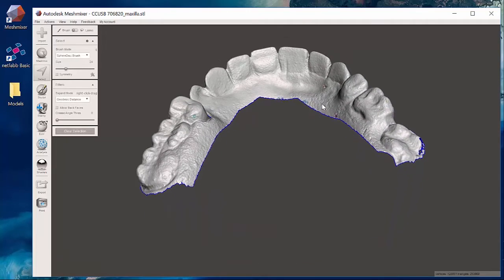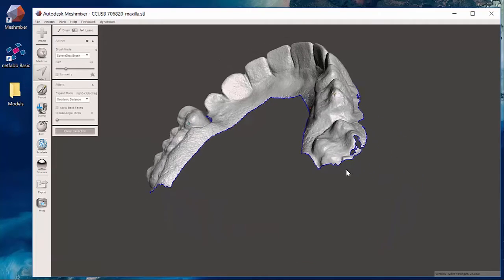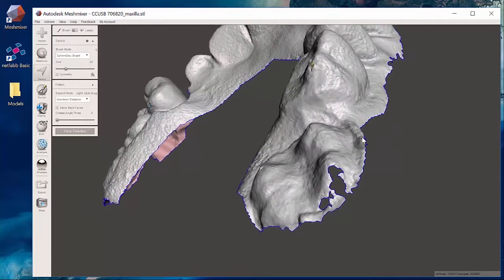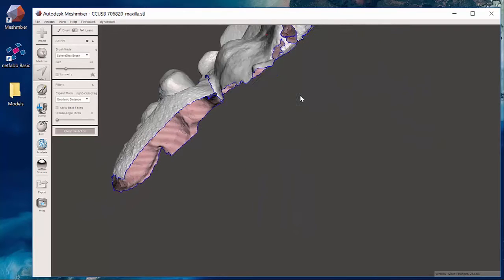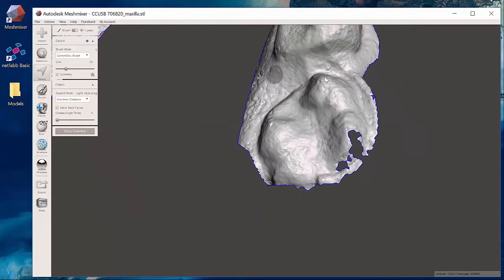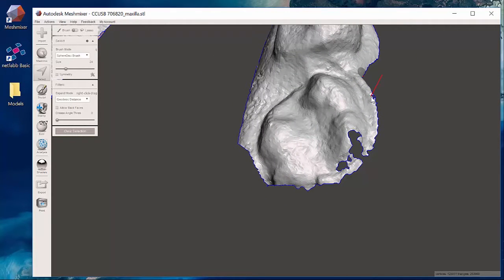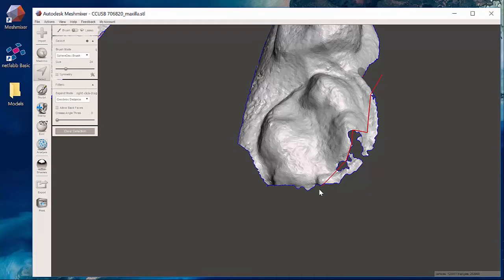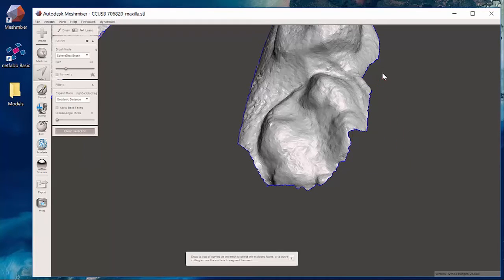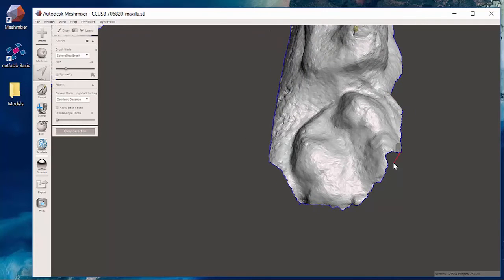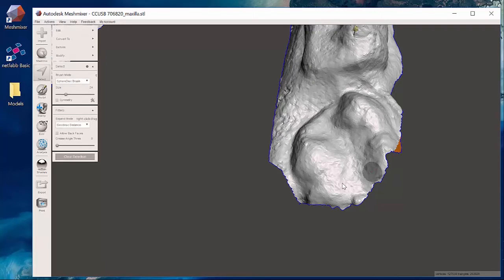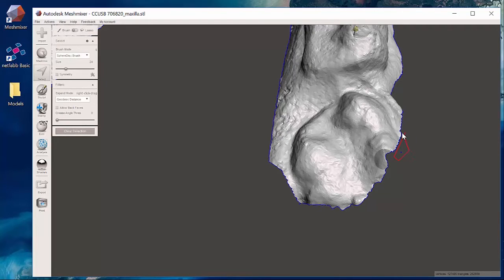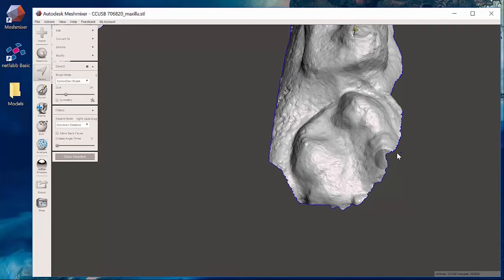Since it's just an opposing model I don't really need all of that stuff as part of the scan. And sometimes in these really challenging cases where I have to come around these back corners, if I carefully clear out some of this excess back in here that should give my scan just enough to process to allow it to extrude to form a base.